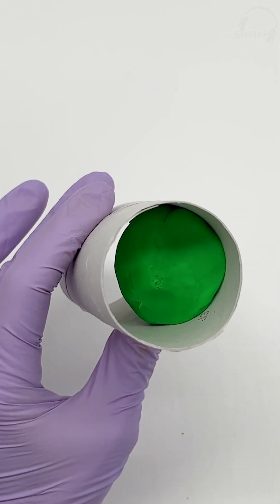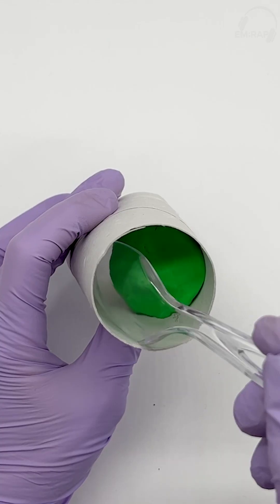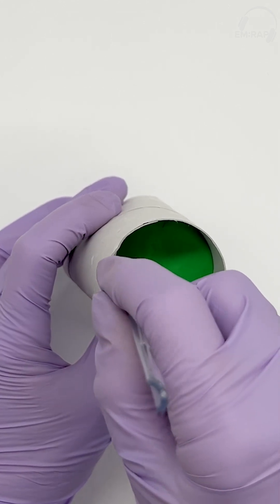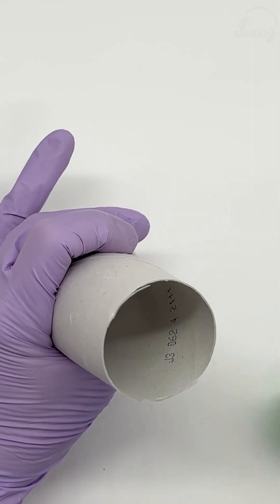Here's an oversimplification using a toilet paper roll and a ball of Play-Doh. If I can slide my tool along the side that's patent or open, I can hook or scoop the wax and extract it.